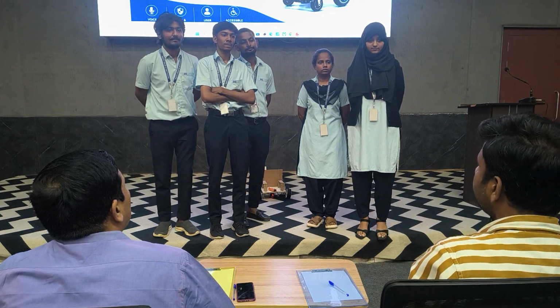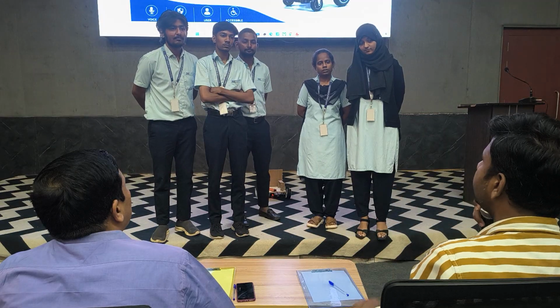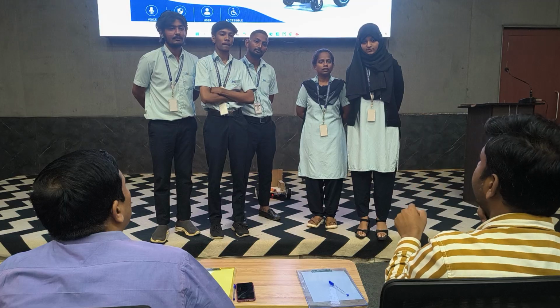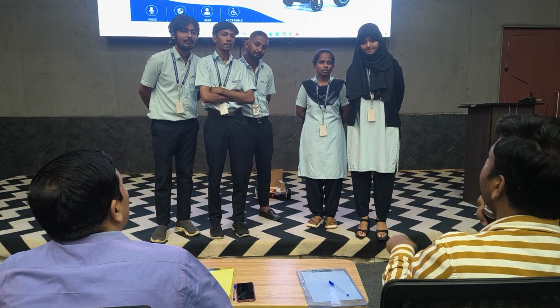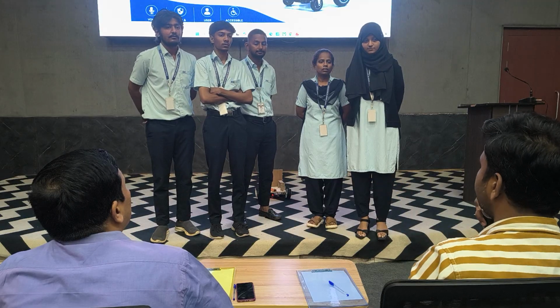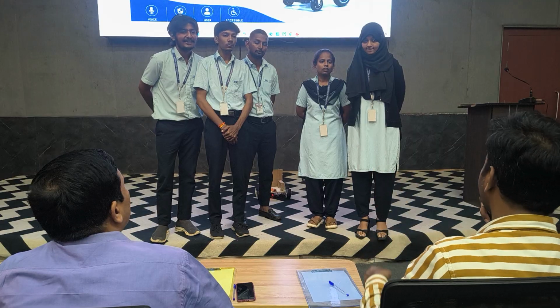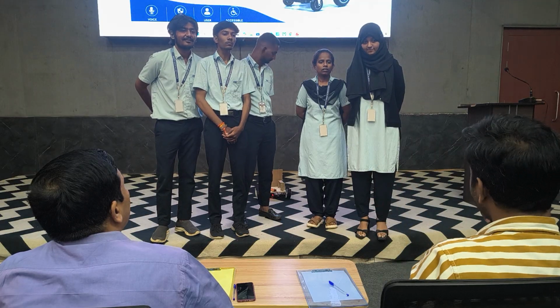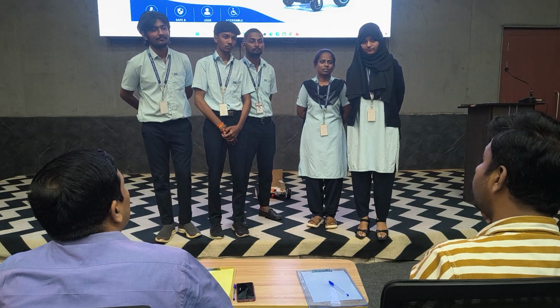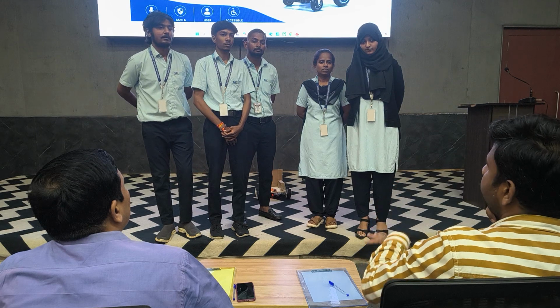In the same way, can I also get that? Because obstacle detection is there, and you also spoke about voice command. Then I feel you could have worked more on voice command. Voice command modules already exist; it is hardly a 2 or 3 hour matter for you people. It's all great, and I think you could have worked more on it.